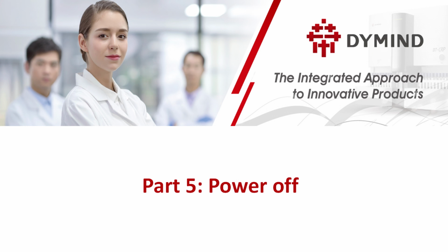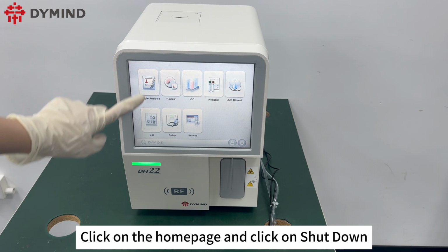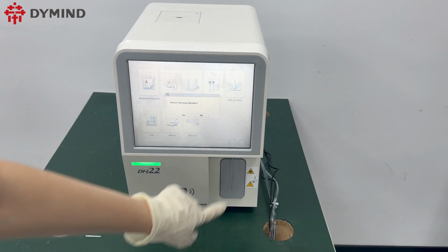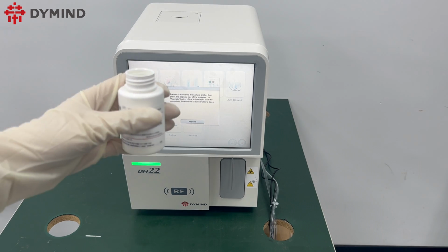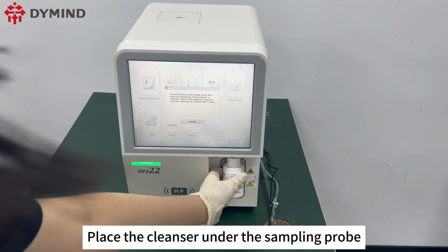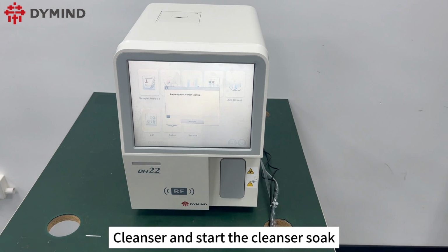Part 5, Power Off. Click on the home page and click on Shutdown. After getting a pop-up, place the cleanser under the sampling probe. Click the aspiration button to suck up the cleanser and start the cleanser soak.